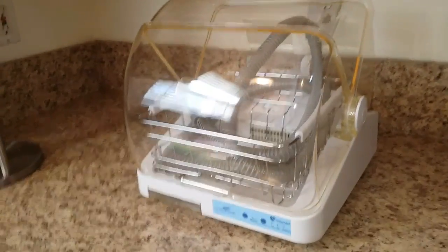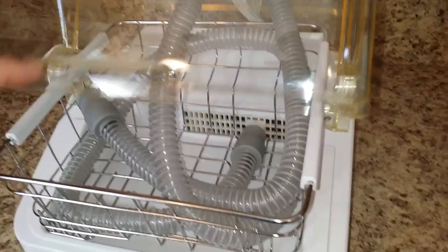So here's the dryer. You can see here I hooked up my tube to it and I just have wrapped the hose around to kind of follow the contour. I don't know if you can see, but there's some water droplets right there in the tube.